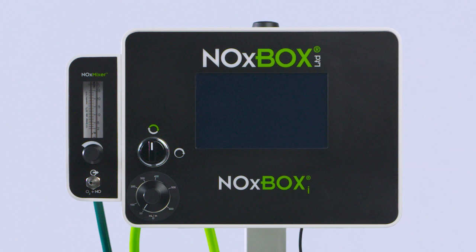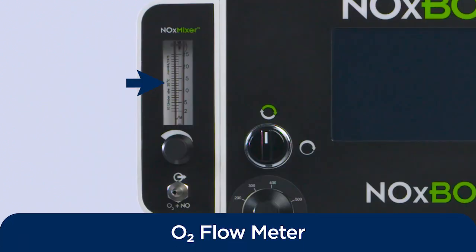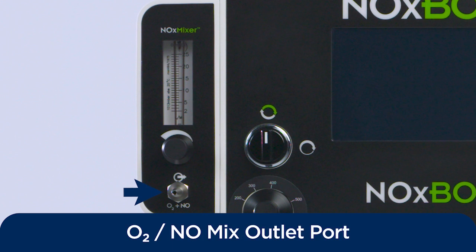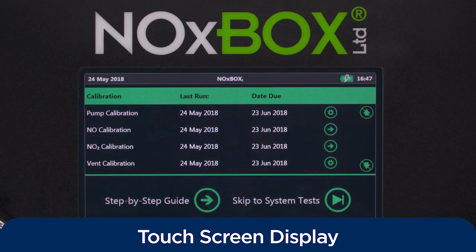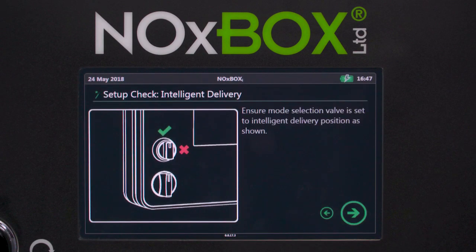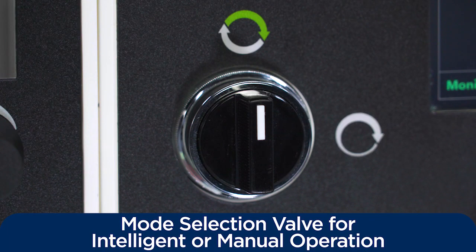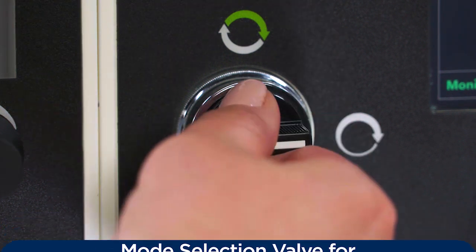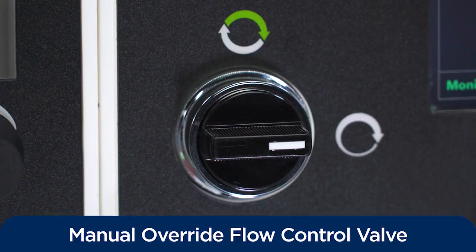On the front of the NOxBOXi device to the left is the NOx mixer, which includes an oxygen flow meter and a mixed oxygen and nitric oxide outlet port. The main head unit contains a touchscreen display with an easy-to-read interface that guides the user through the setup procedure step by step. The NOxBOXi system can be operated in either intelligent or non-intelligent manual mode with the turn of a knob. Both options are available on the same unit.